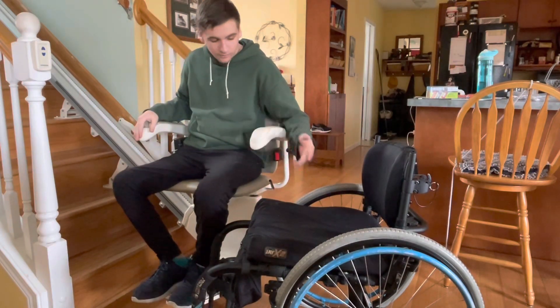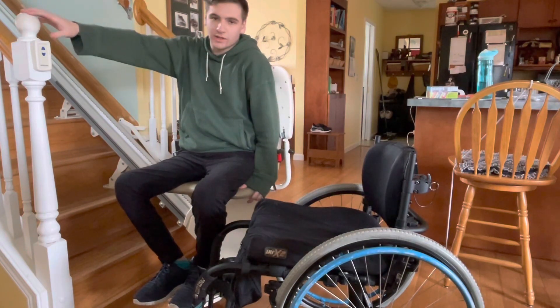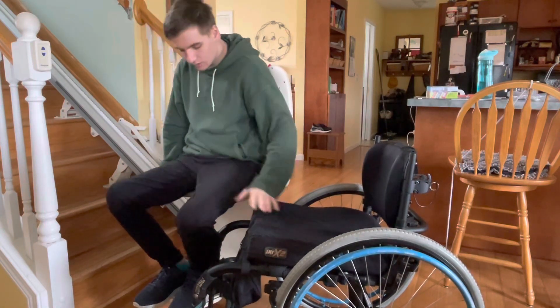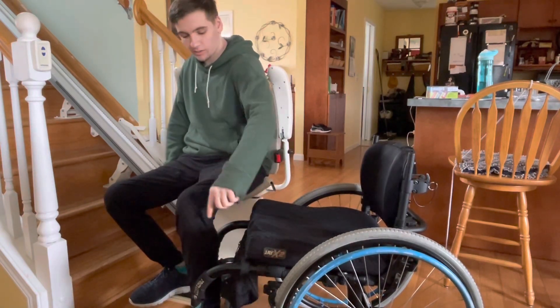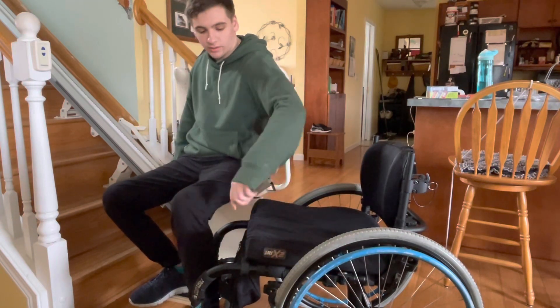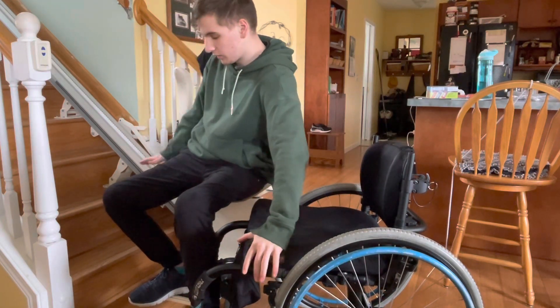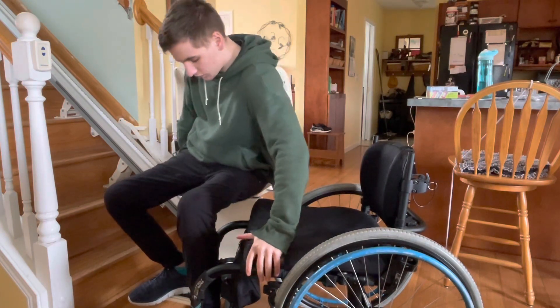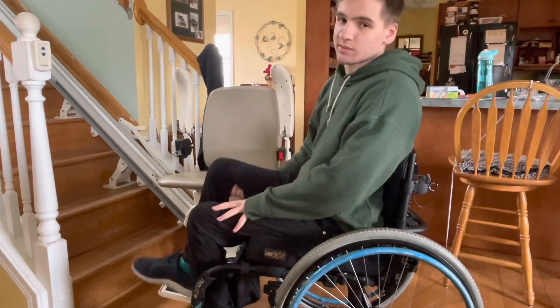Getting back is basically the same thing. I have a little handhold here I can use, but if I don't have that, I get to the corner, put my front foot to where I want it to be, then hand on the far side leaving room for my butt to land, hand on the seat over here, and just turning back into my chair. The big thing is it's more of a turn.